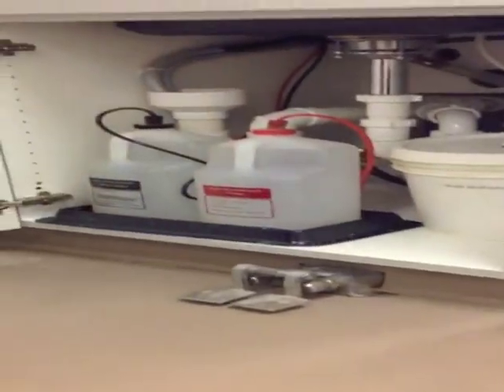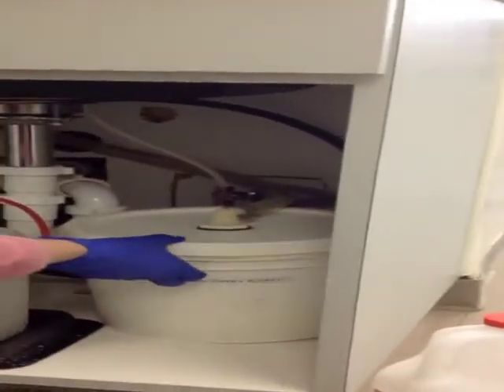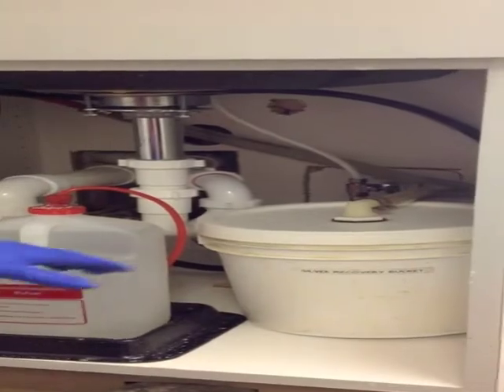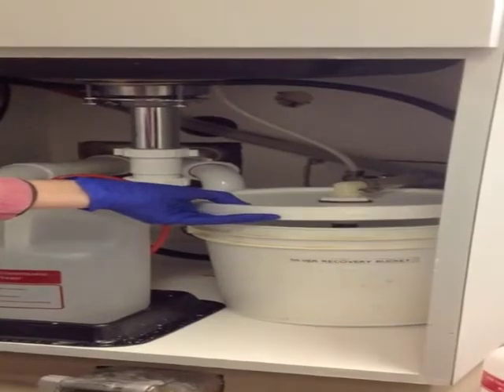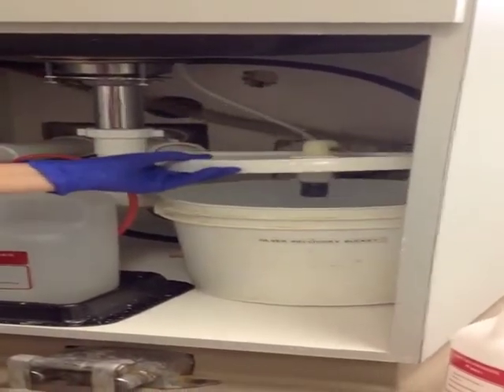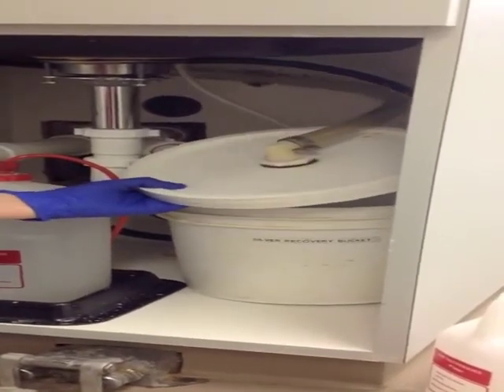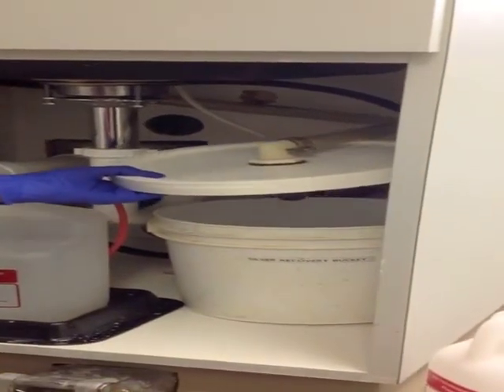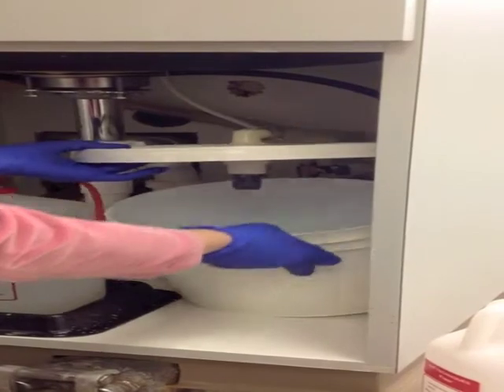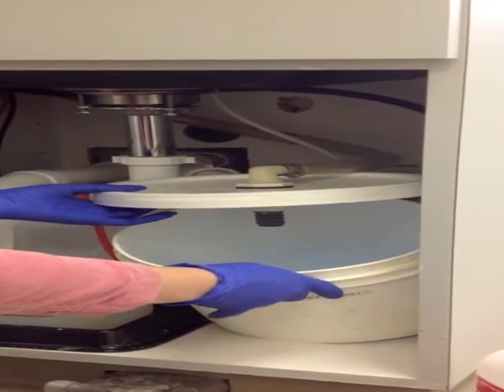Now that those have been changed, one of the other things we need to do is always check the recycling of the silver recovery bucket. The one thing you need to make sure you do before you empty this bucket into the large bucket in the darkroom is make sure that all the solution has come out of the tubing. Sometimes if you lift this up, there will be more solution that will drain out. If that solution doesn't drain out, then you will have a water mess that you'll need to clean up. This solution that's in here will be poured into the large white buckets, which we will show you found in the dark room.